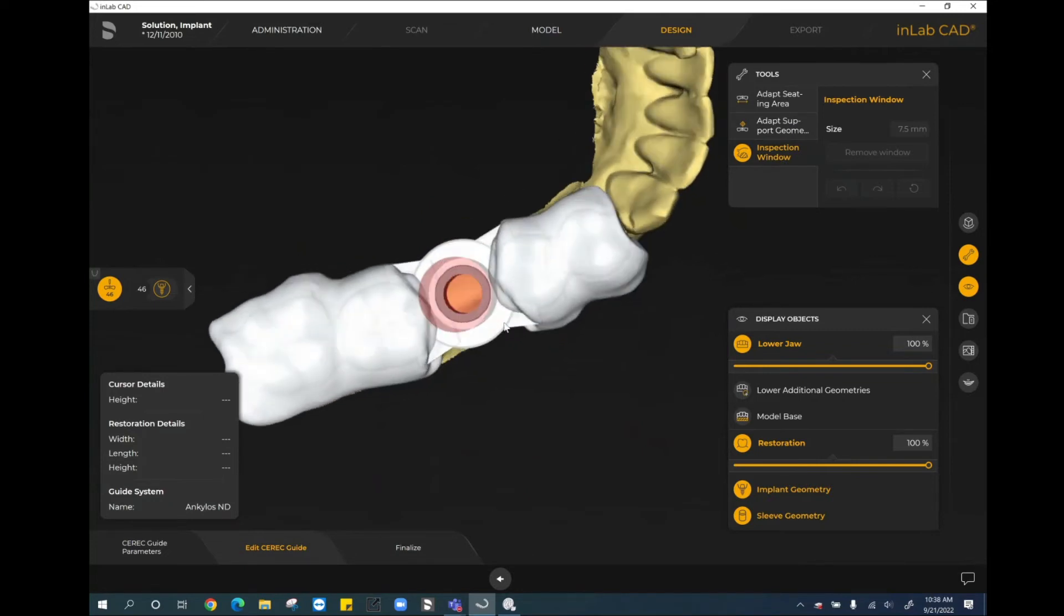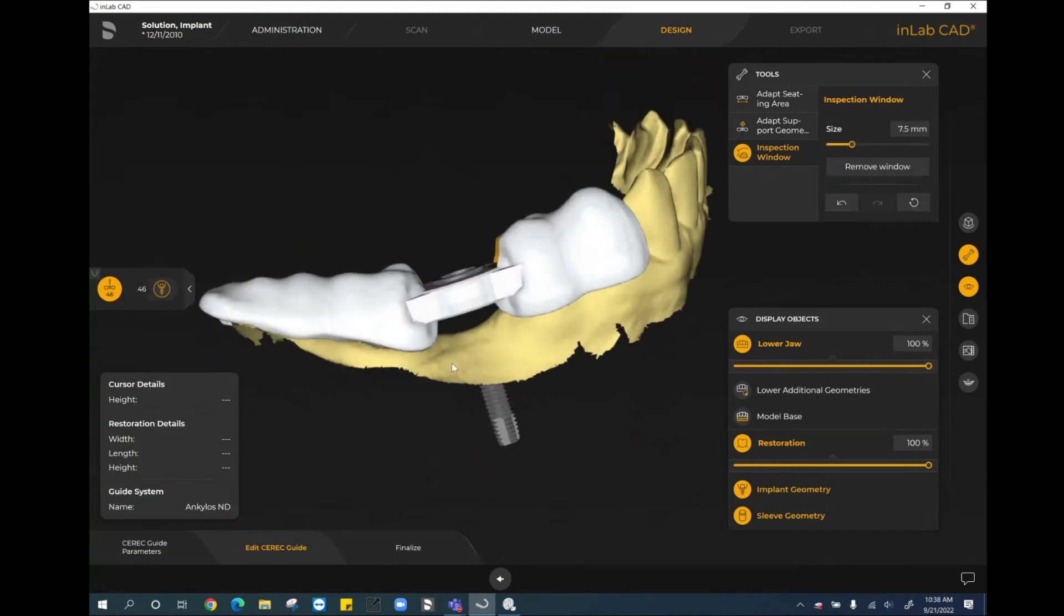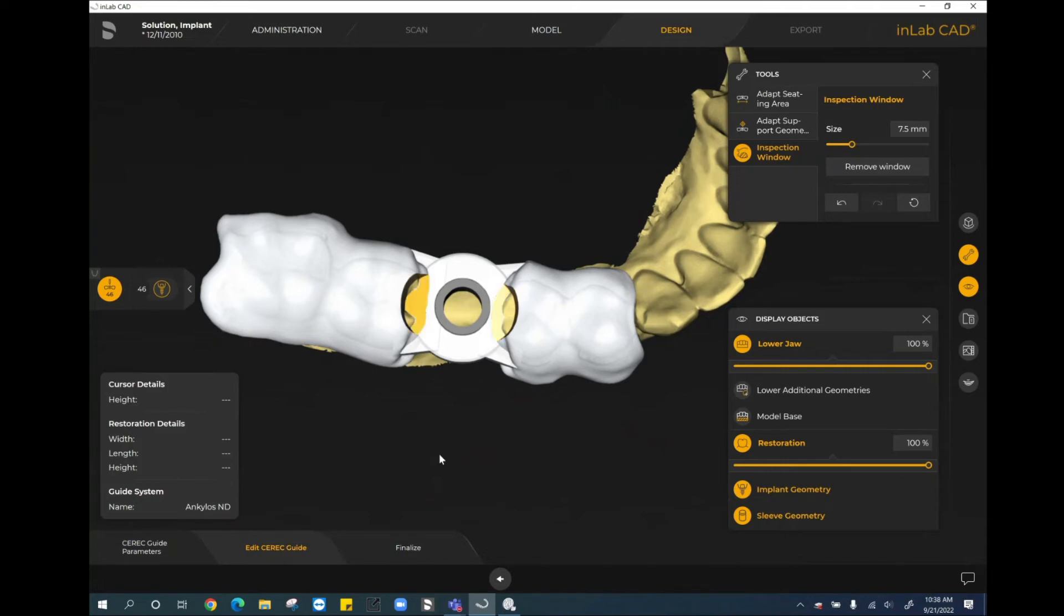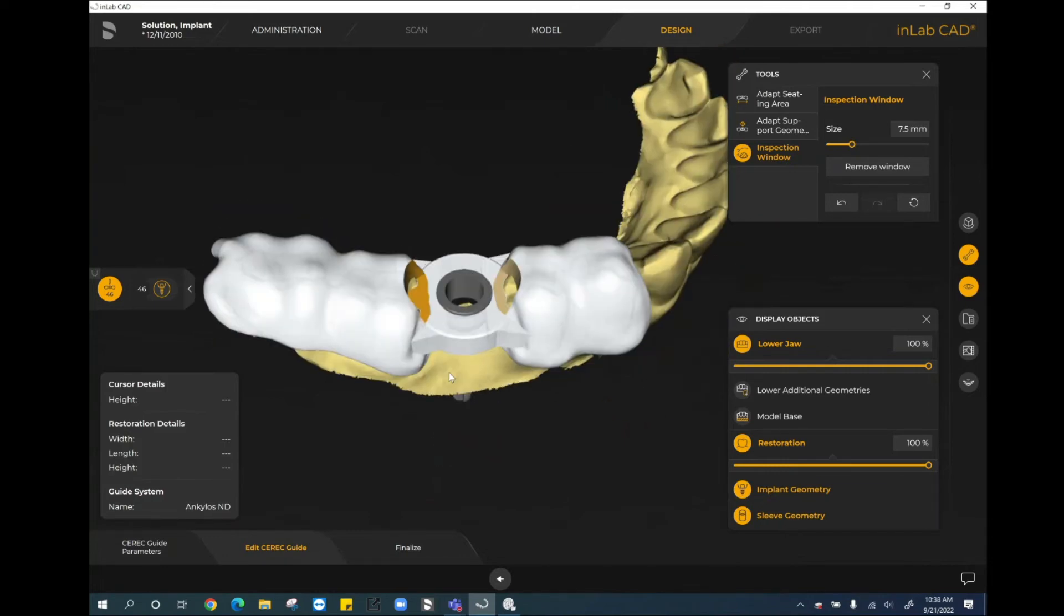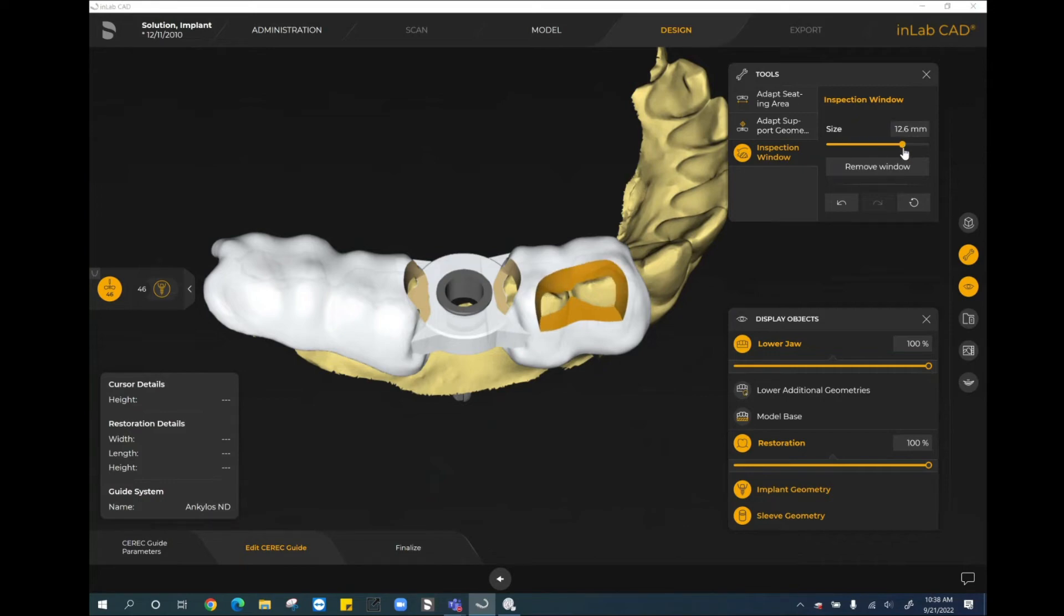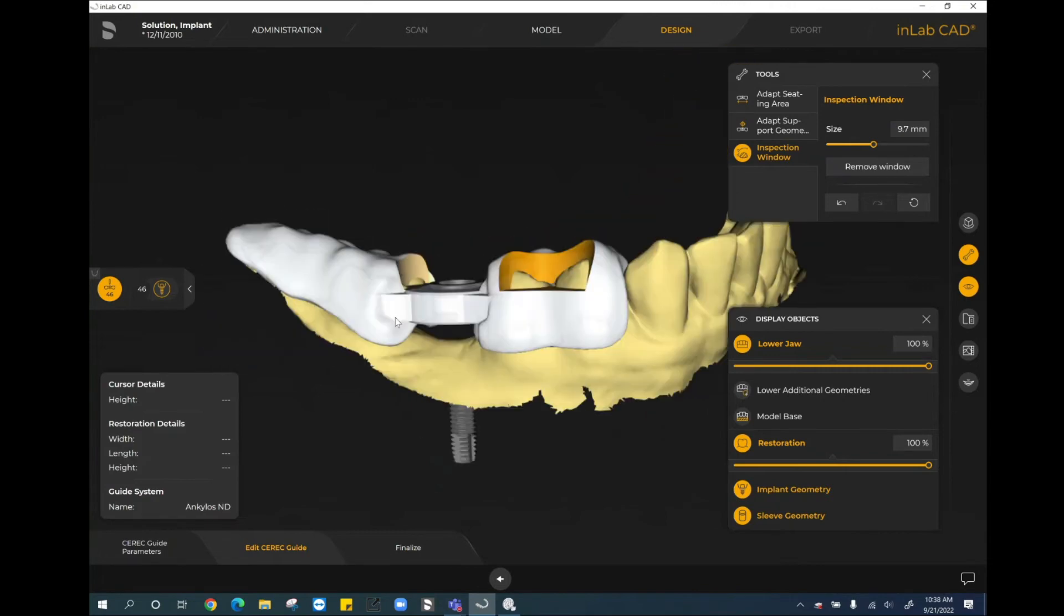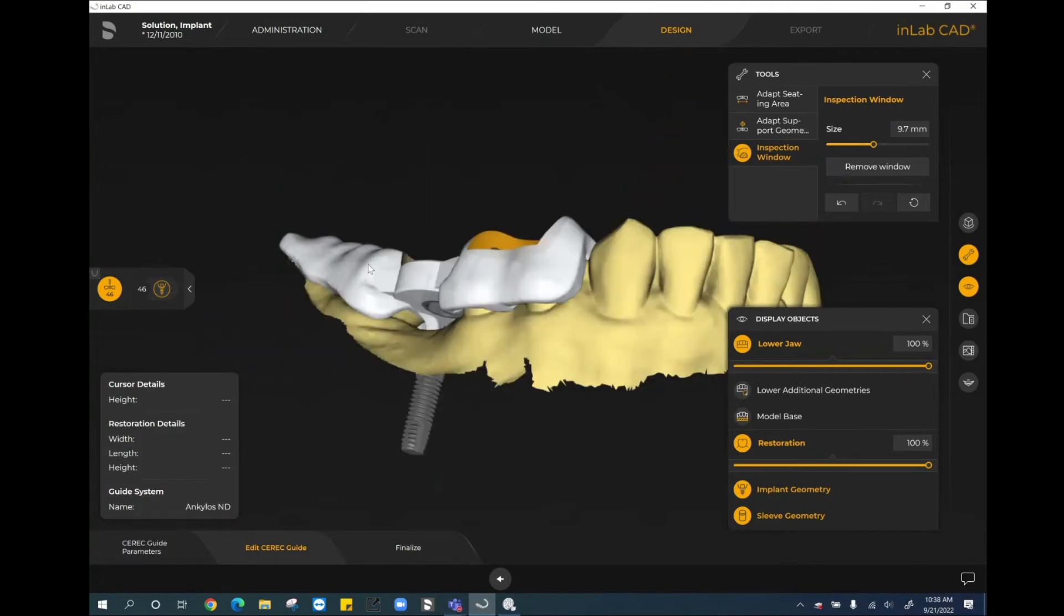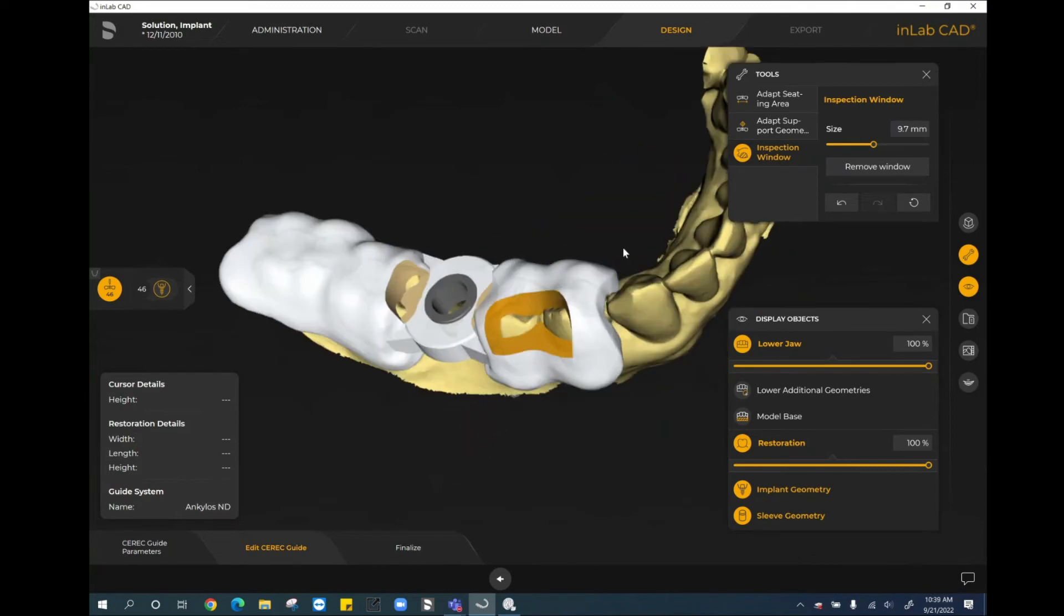With the inspection window tool, I can basically create kind of a hole punch right here on, in this case, the distal of the five. And then all that did was that created a little bit more space. Now if I wanted to do it on both sides, I could. However, technically, I'm in the clear here. But just for symmetry, if I wanted to do it on both sides, I absolutely could. With the inspection window tool, I can also create further inspection windows. If I wanted to create an inspection window here, just to see that it's fully adapted to the seat, I could. I can also increase or decrease the size of the window on the right hand side here under the tool. I can now see from a visual perspective, when it's inserted into the patient's mouth, that this guide is fully seated. So that's basically how you can edit the guide as you need to.